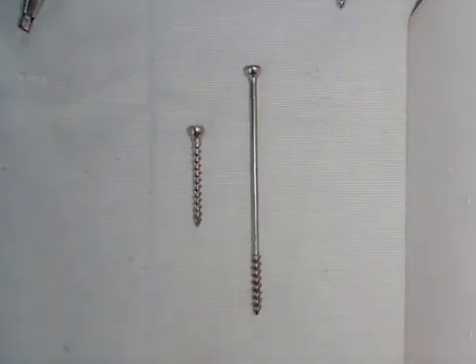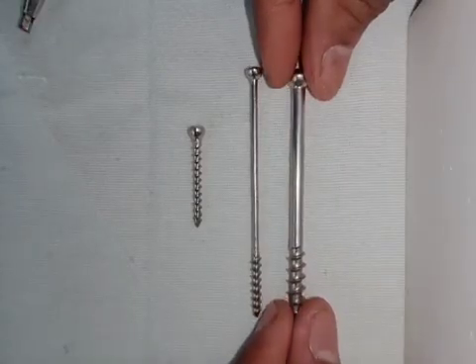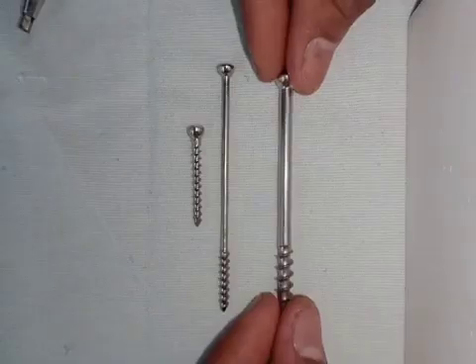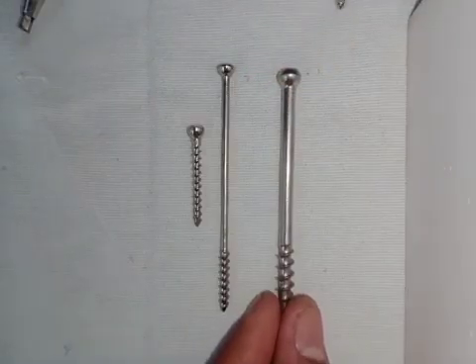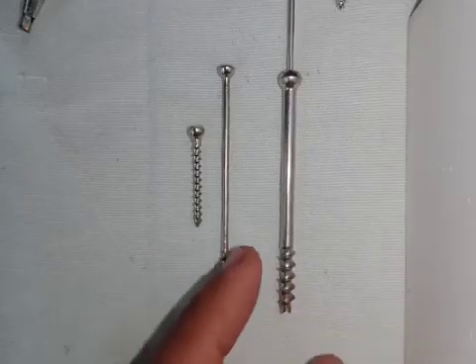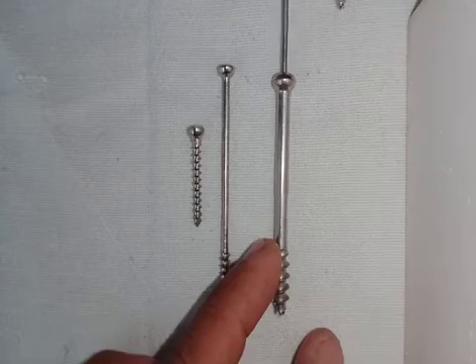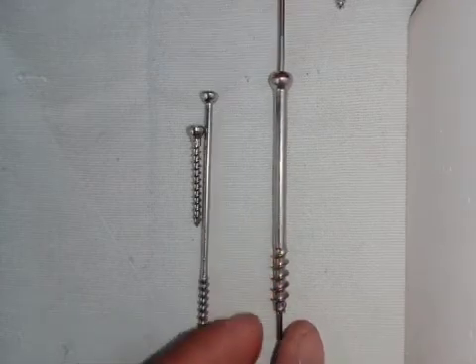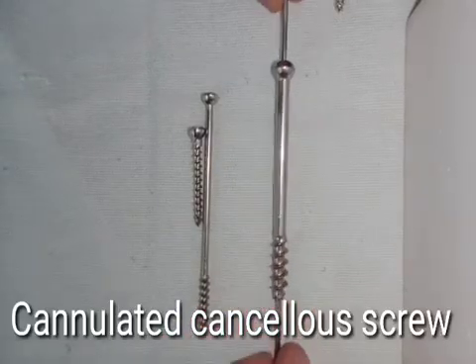In the partially threaded cancellous screw category there is another type which looks almost the same, maybe a little bigger, but there is one huge difference. If I take the guide wire and put it inside, you can see that the guide wire goes through the whole shaft of the screw and comes out through the other side. This is called the cannulated cancellous screw.